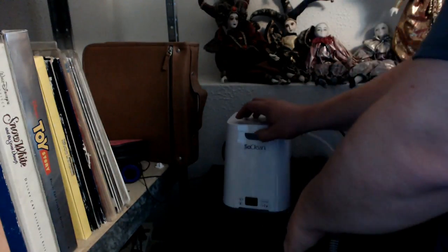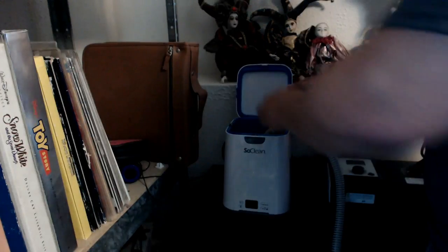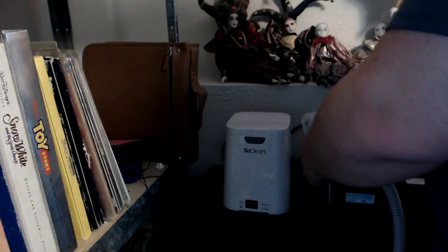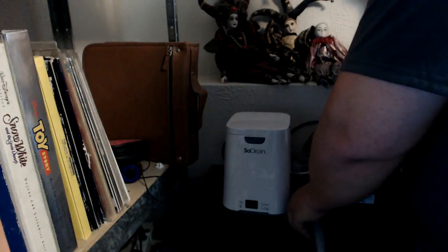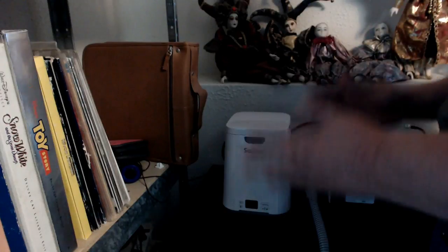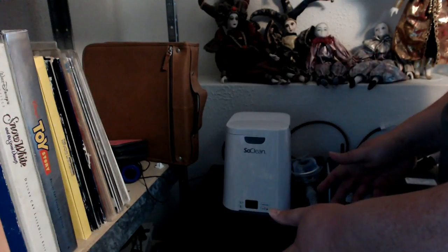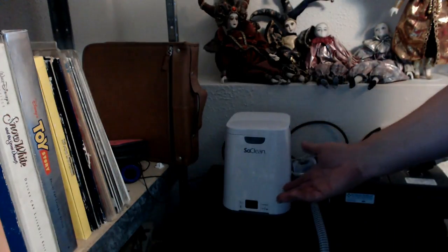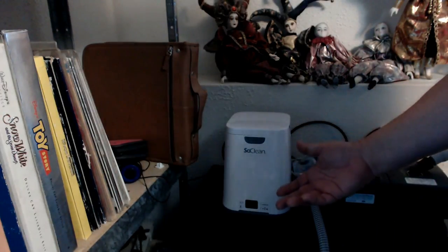When you see it's green, just push the button, put your headgear back on, and get ready to sleep once again. That is literally all there is to it. They should call it 'SoEasy' because it really is that easy.